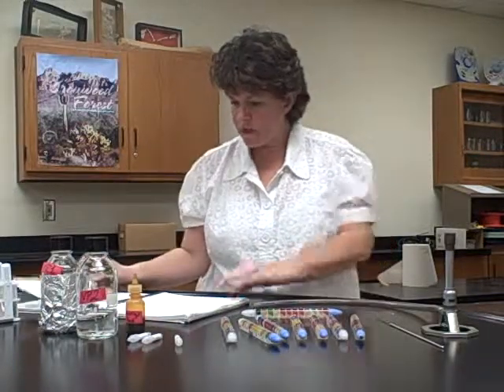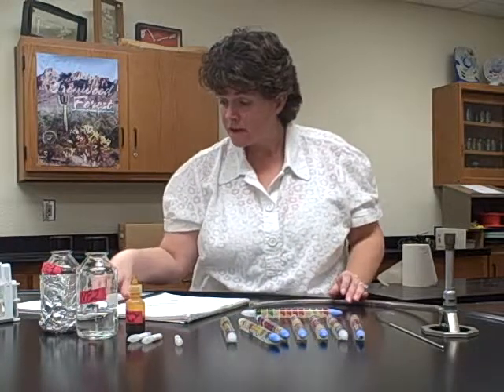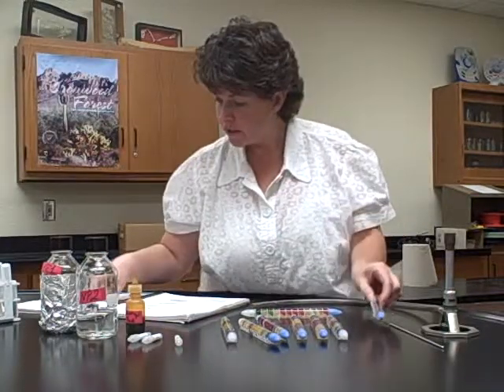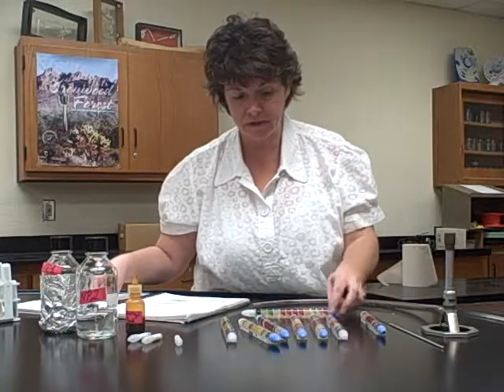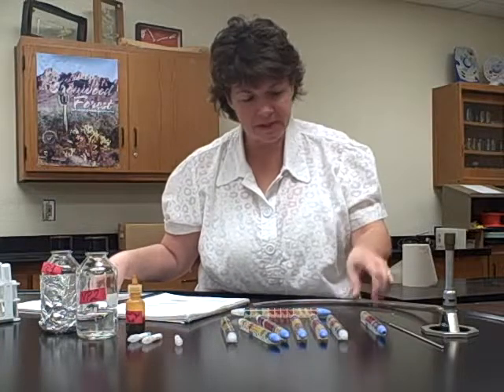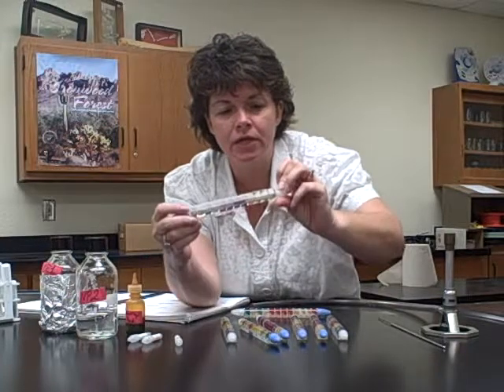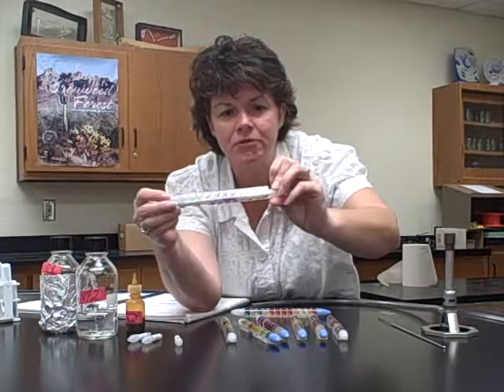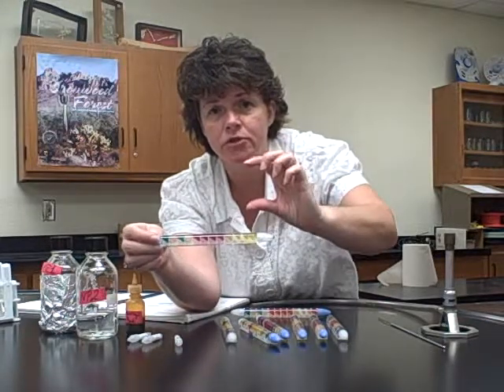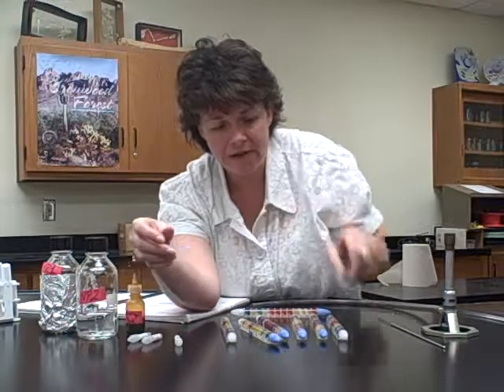So what you want to do is look at page 109, which is the table for this. Glucose is the first compartment, so that's this one here. And you're looking for acid, which means it turns yellow, right? Because it started out as red. And then if it produces gas, that wax right here separates from the actual yellow. On this one, you can't see it in the video, I'm sure, but I can see the separation. Remember in the tubes we had that Durham tube where you looked for a gas bubble? Here you're actually looking for a separation in the wax, okay?